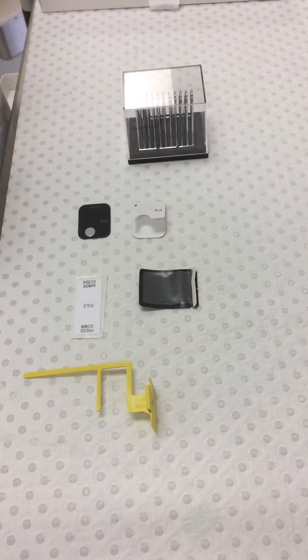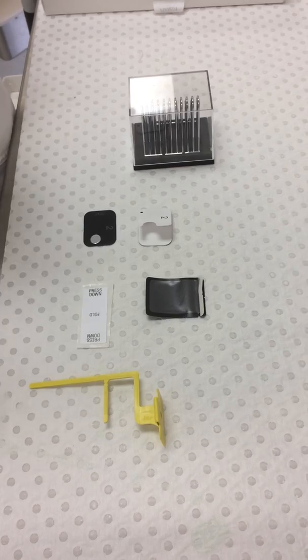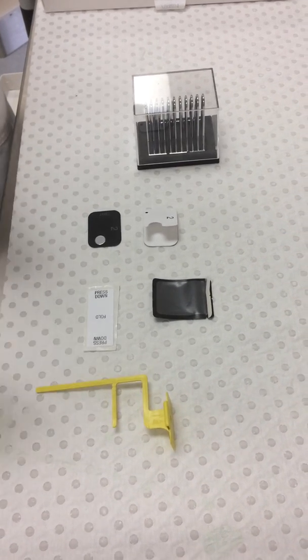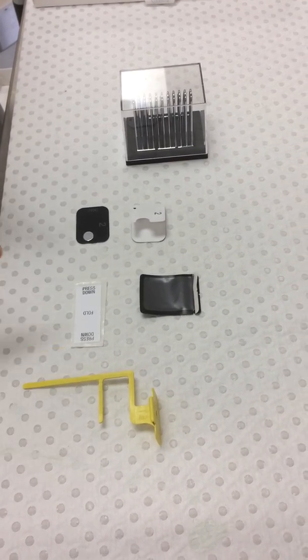Now we're going to demonstrate how to set up a phosphor plate ready to take a bite wing exposure. There are two types of bite wing holders that we're going to use.